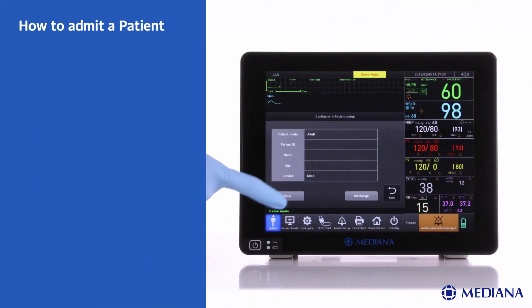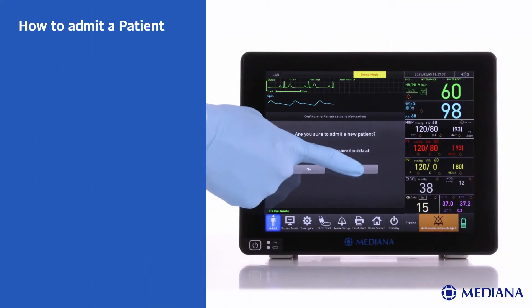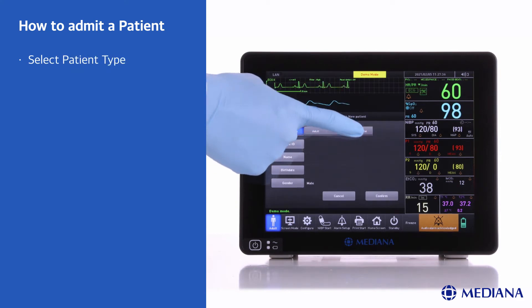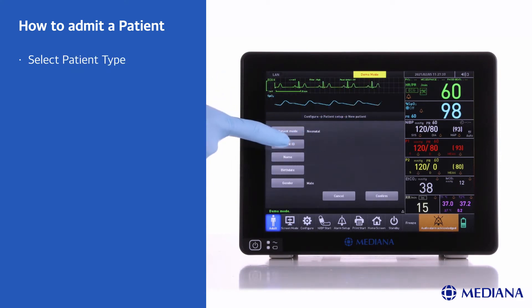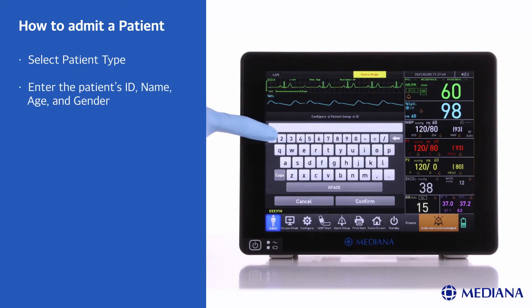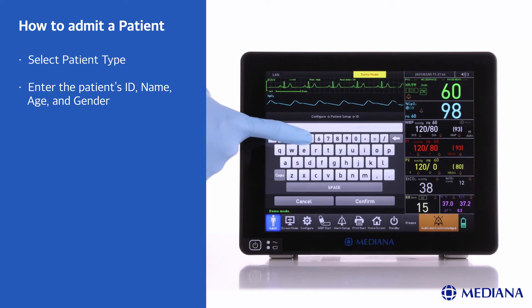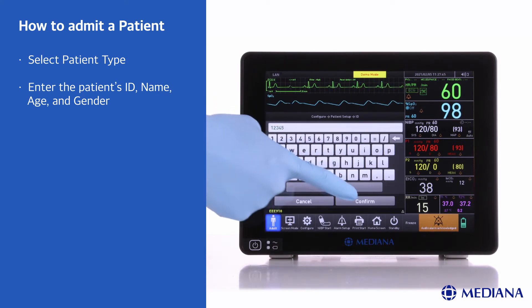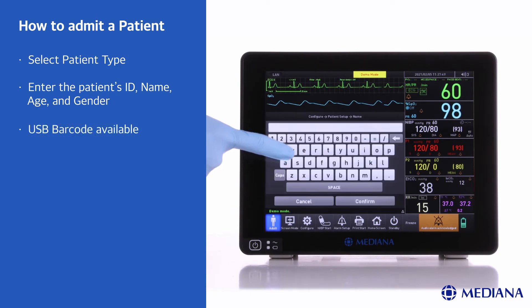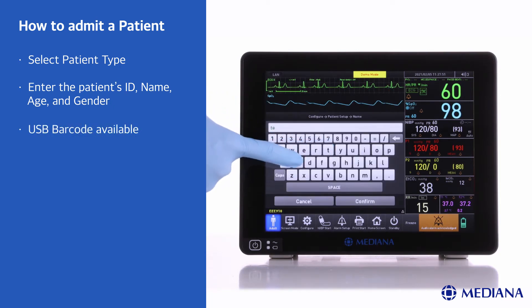To admit the patient, press the adult icon to enter required information. Enter patient type, ID, name, age and gender to complete the admission. Users can enter the patient ID using a barcode reader.